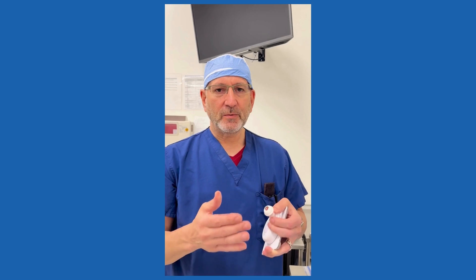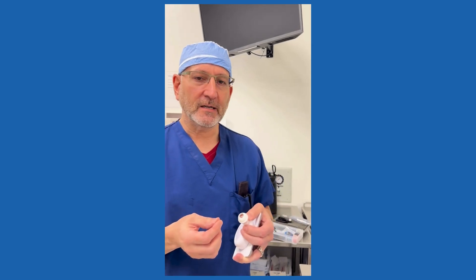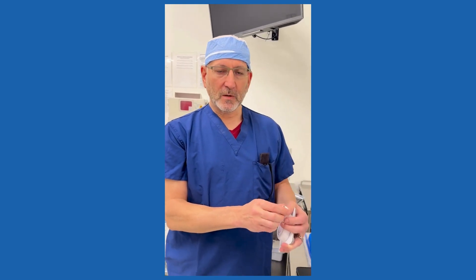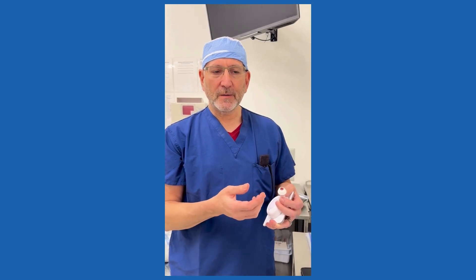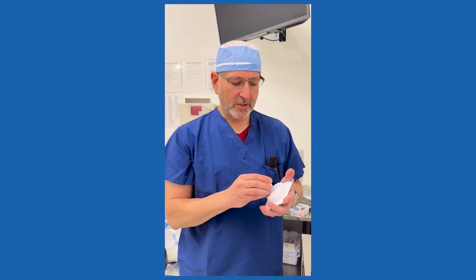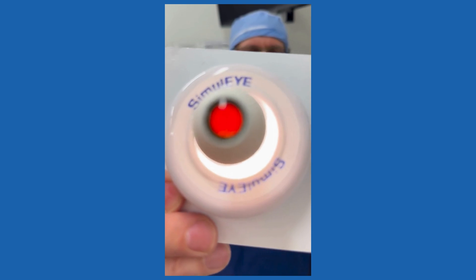That has subsequently evolved into what we call our BIO model — binocular indirect ophthalmoscopy. That's really for training with the headset, the indirect, learning how to view inside the eye with an indirect ophthalmoscope, but it has a lot more applications as well. It has not only just a red reflex, but it actually has a retina in the back of it. If I bring this up, you should be able to see into the back — there's a retina back there for visualization purposes.